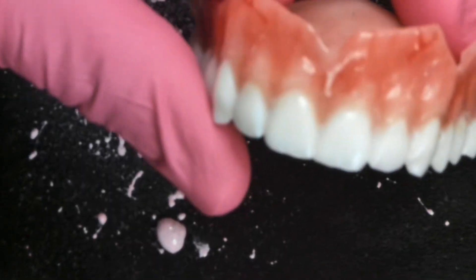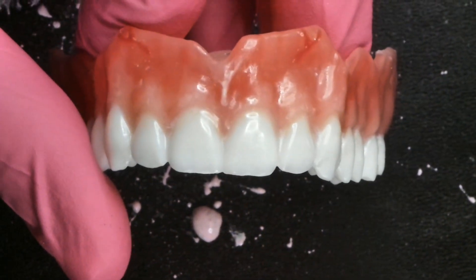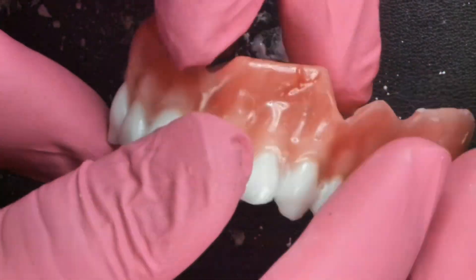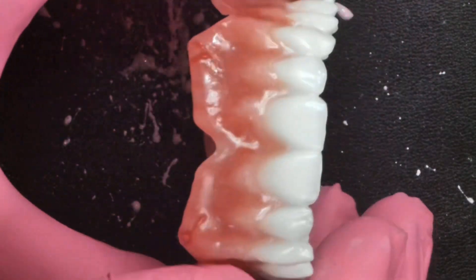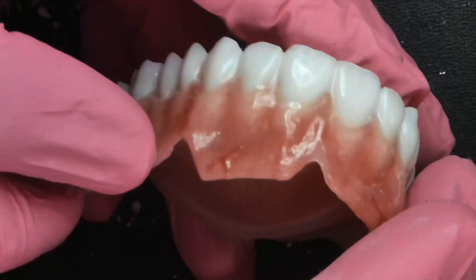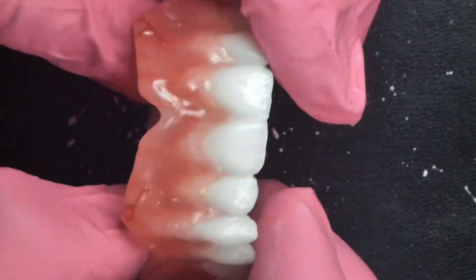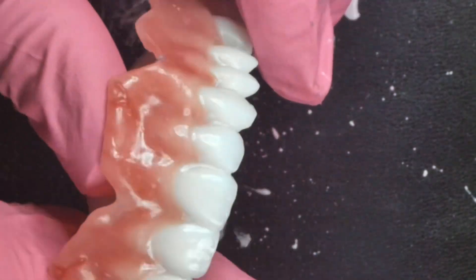This is an ultra glossy surface that is plaque resistant, stain resistant, and ultra hard. It is a surface that has been polished after a proper cure with oxygen scavenging systems such as nitrogen and glycerin. Look at it — it looks incredible. And look at the candy coating: all the custom tints that I put on the tissue are still there even after pumicing and diamond polishing. This is what I need to drive home to you — it holds up over time.